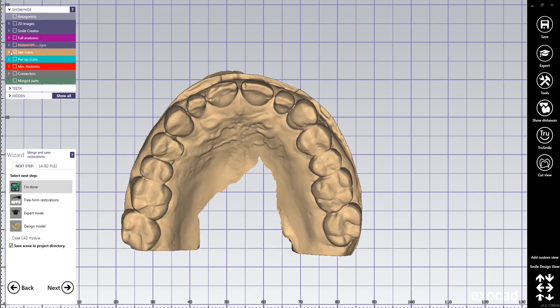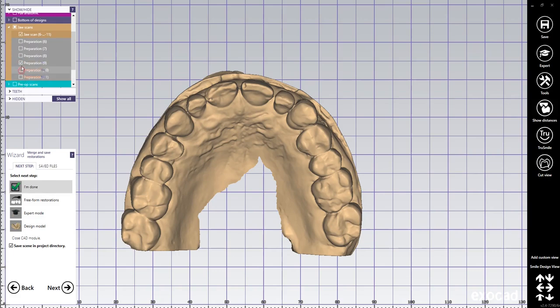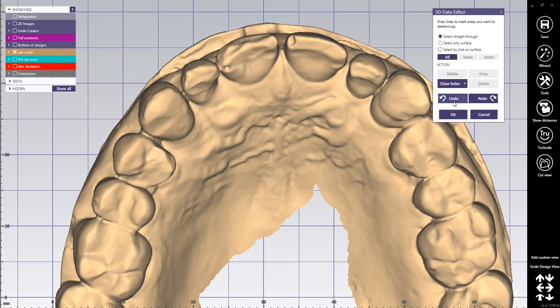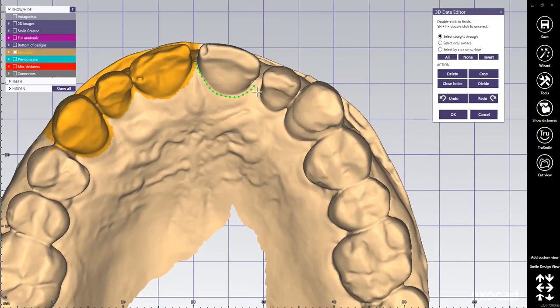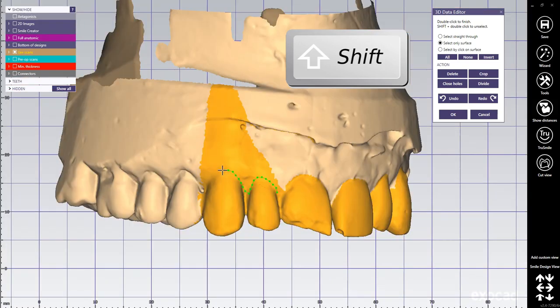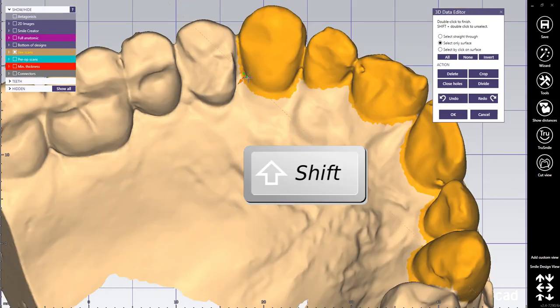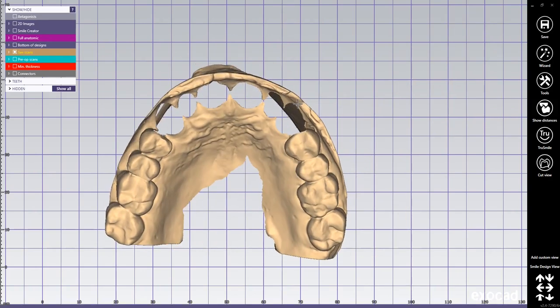Once this is saved, I'm going to bring in my preparation model again. I'm going to get rid of all these old preps — I'm going to deactivate them all, one by one. I go to right-click edit, and I have straight through. Now I'm marking all the teeth that I want to cut — I'm going to go all the way around. It's turning yellow, same on the other side, all the way around. Not too much on the contact area — be careful at the contact. Now I hit shift and hold it, and deselect the area that I don't want to cut. I go as close as possible to the margin and I delete everything, so now I have a hole in there. That's okay.